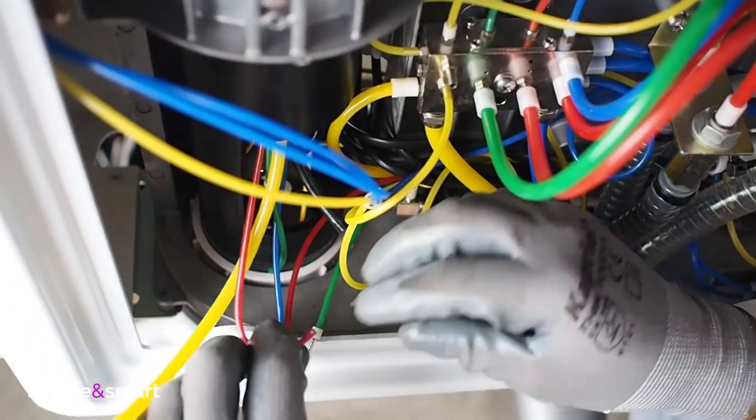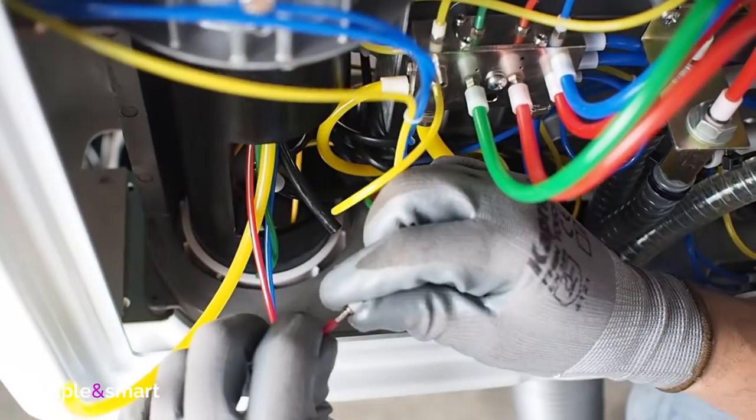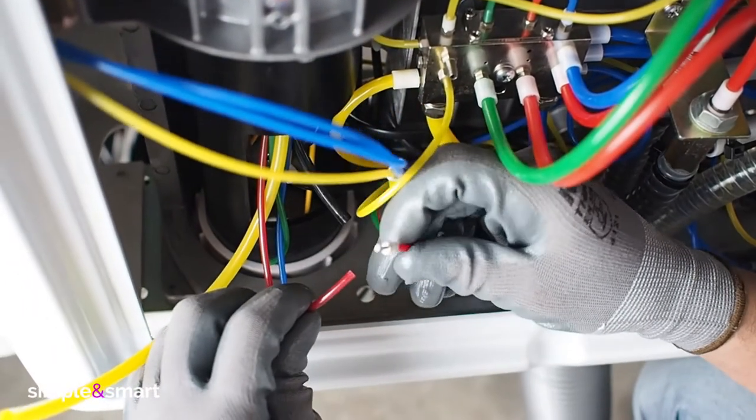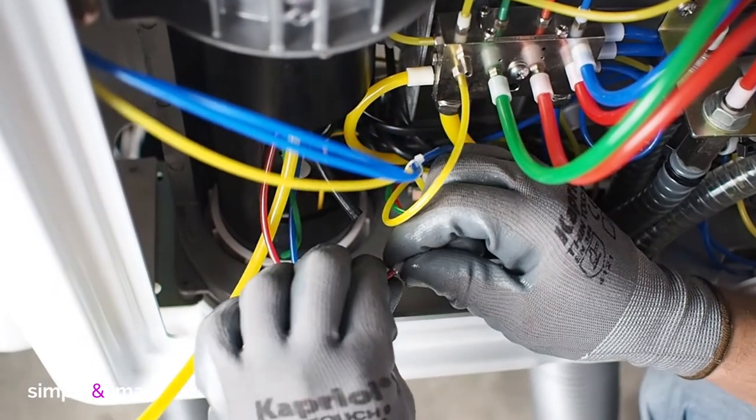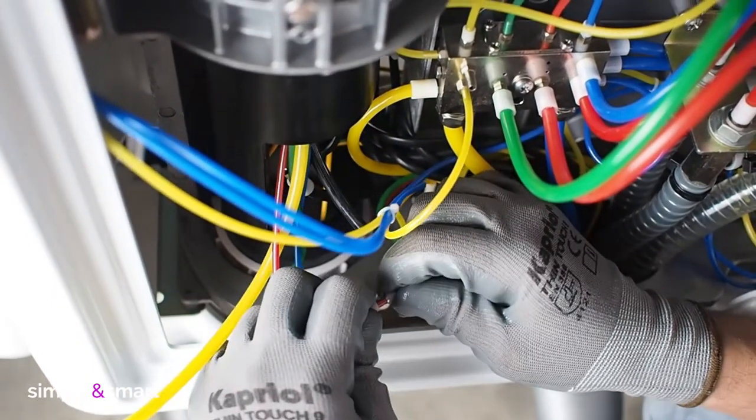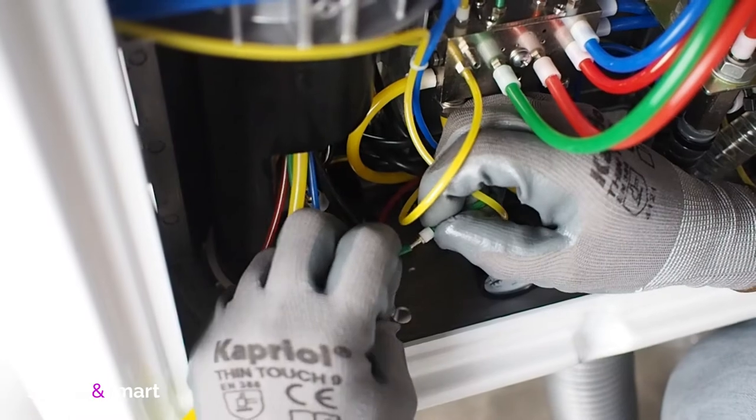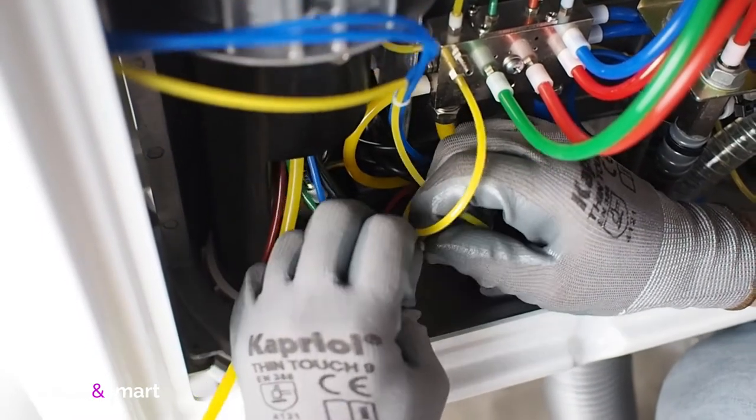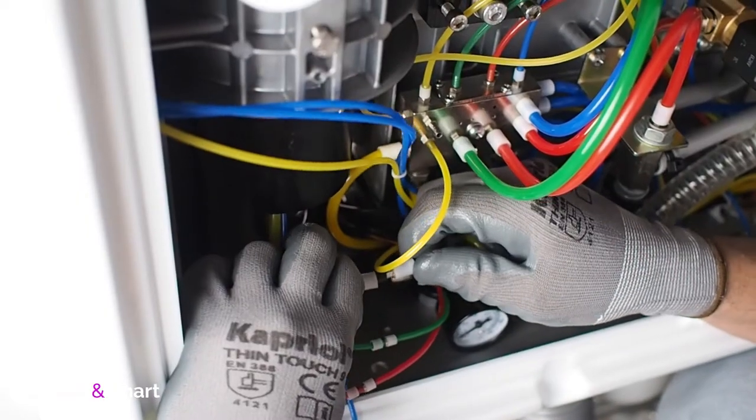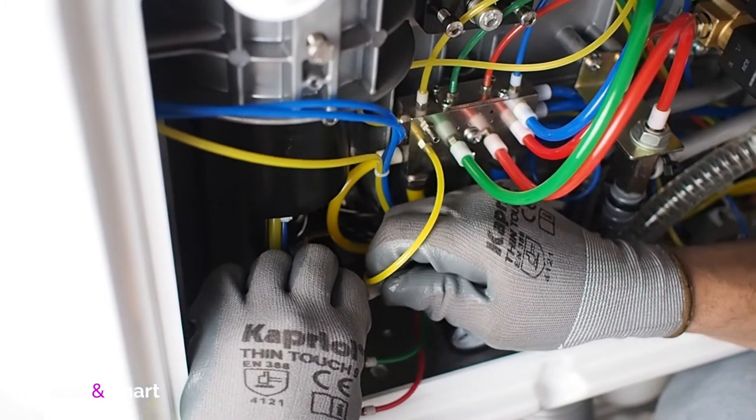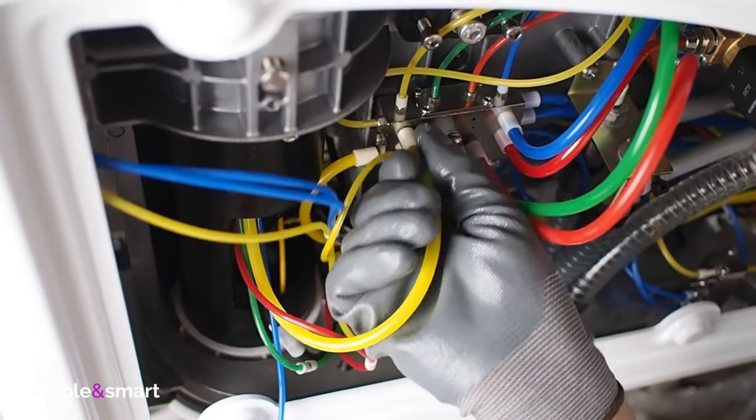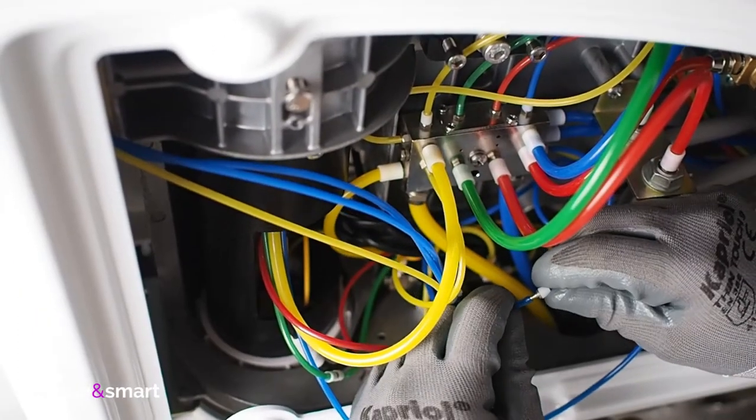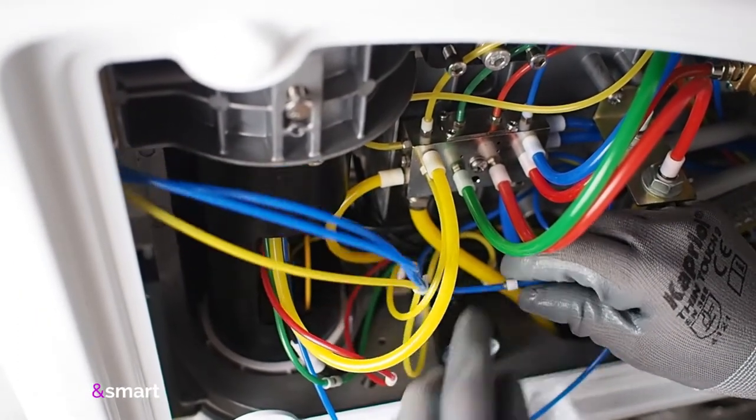Place the ground wire in its position and close the wire holders to keep them in the correct position. Red, green, blue, black, and yellow tubes must be reconnected. And the installation of the instrument tray is finished.